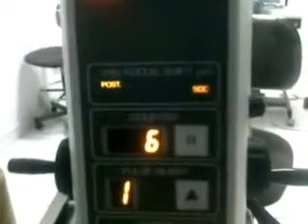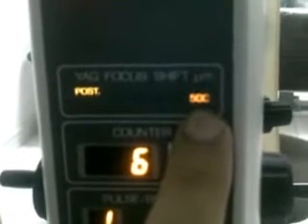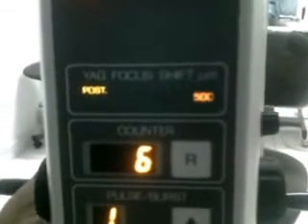Here is the most important — this is the YAG focus shift by micrometer. Here is the posterior. Posterior by 500 micrometer is the best distance for the posterior capsulotomy. You can use other distances, but the best is 500.